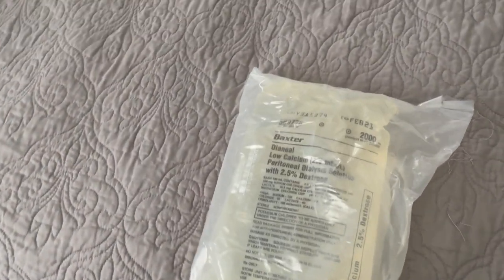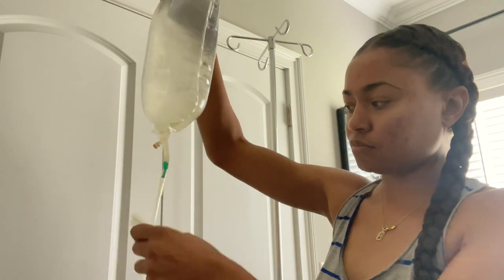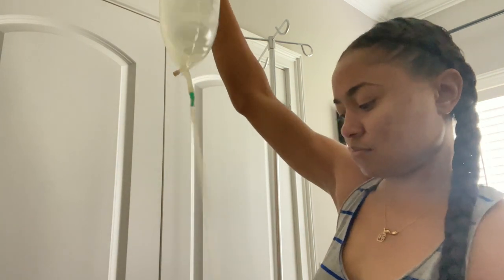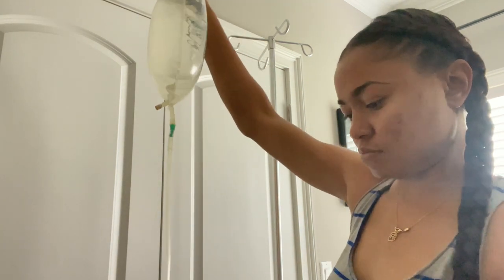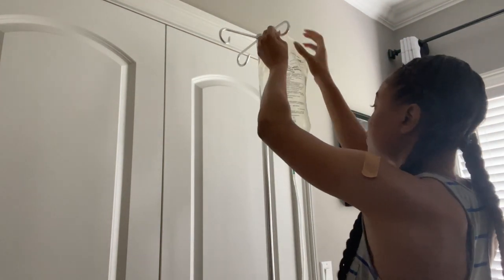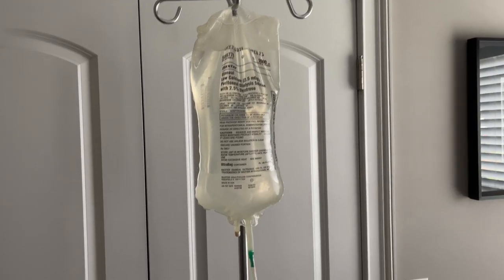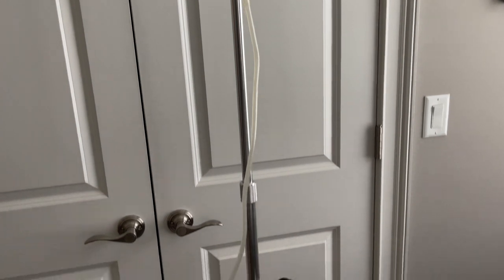The difference with the manual bag is this long tube that's in your manual dialysis bags. Once you remove the bag from its packaging, you will have to go in and actually pull apart the drain bag so the tube is unraveled. Once that's done, you just hang it on the top of your dialysis pole — the hooks are there for that purpose. Once everything is unraveled and your bag is hanging from the hook, this is what everything should look like.